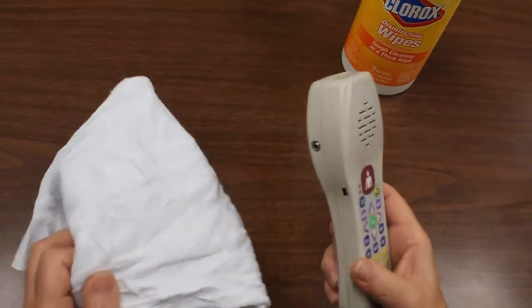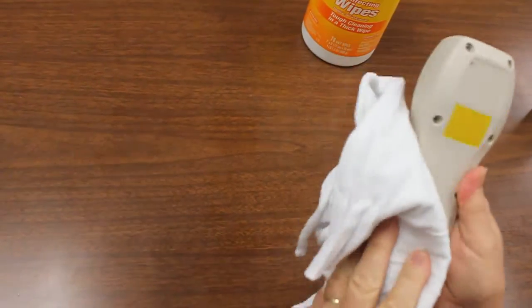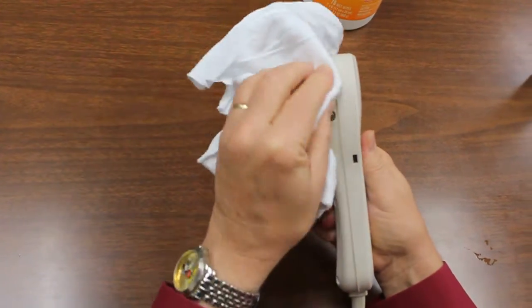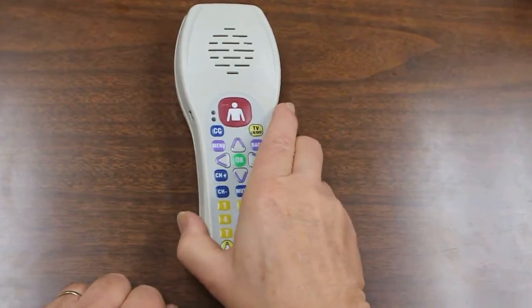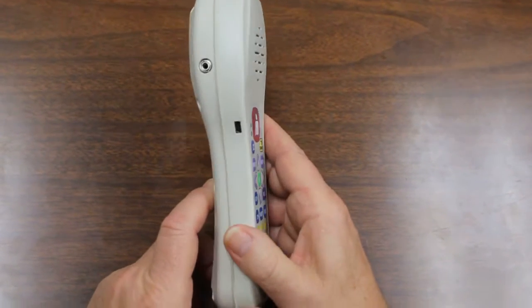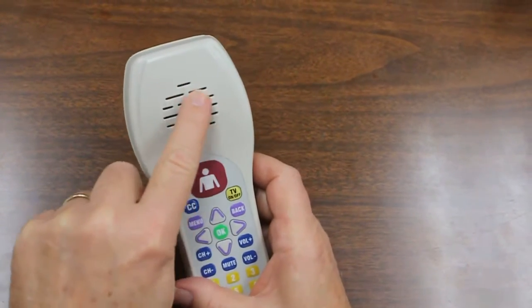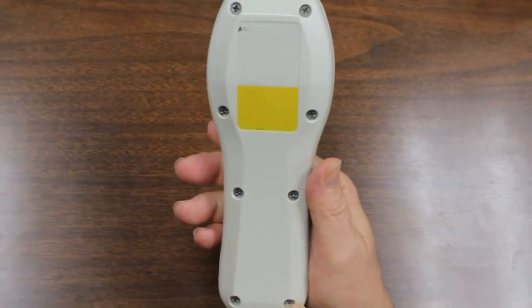The pillow speaker then needs to be wiped down with your cloth, getting rid of as much residue as possible, including the area where the keyboard port is located and the audio jack. In some cases, the cleaning agent you use is a gelatinous material, so it's important that that material be removed from the keyboard port area as well as the audio port, including the pillow speaker grill, and also the screw locations on the back of the case.